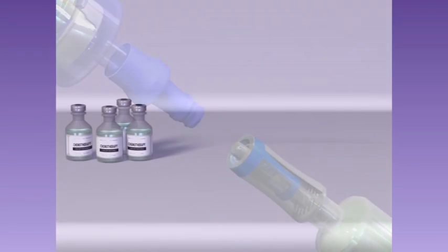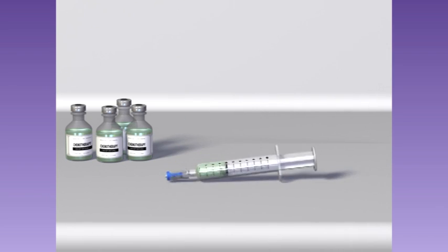The Spiros is always closed until it is attached to a needle-free connector and will protect against spills during an accidental disconnect and during disposal.